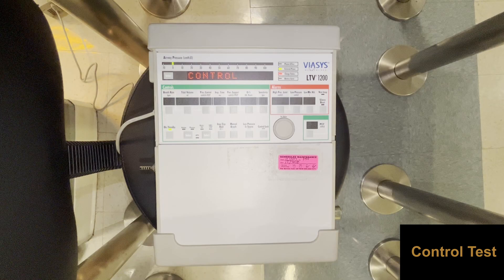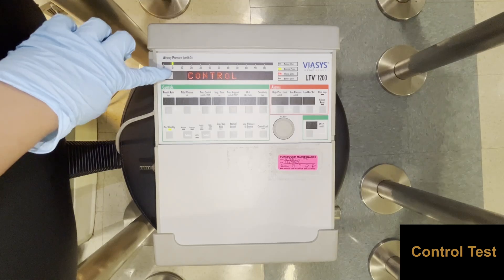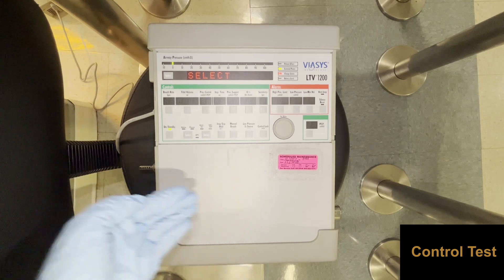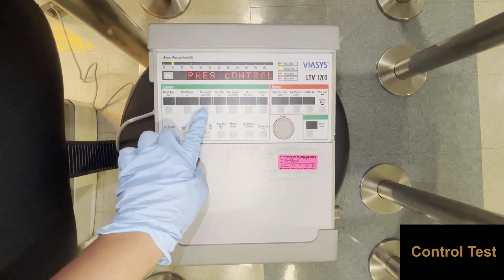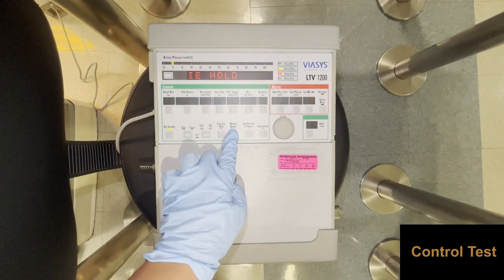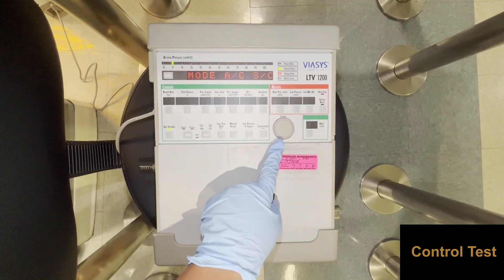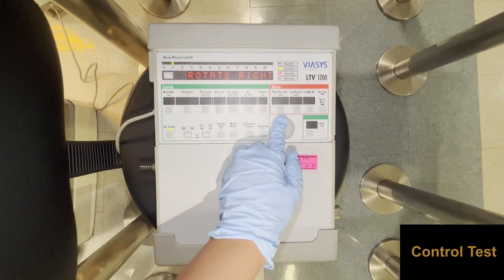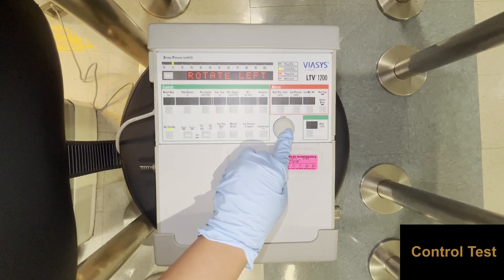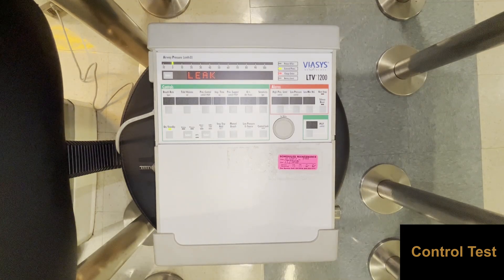The control test verifies that the buttons and knobs are functioning properly. To perform this test, simply push select while control is displayed. Select should appear in the display window. Test each control button, verifying the corresponding name is shown in the display window. After testing the control buttons, check the set value knob for proper functioning by turning it back and forth. The matching direction of rotation should appear in the display window. Exit the control test by pushing select once again and the next menu item should display.